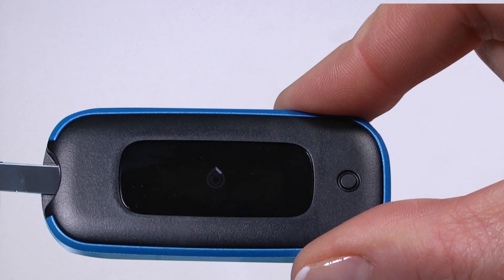It is very important to complete these steps and connect your meter to your device before running any blood glucose tests, because the meter pulls the date and time from your device. If you test before pairing your meter, those tests will store in the meter without a date and time.